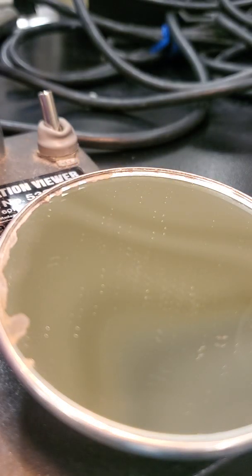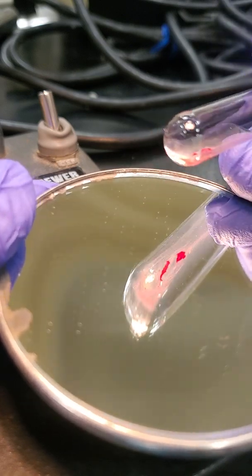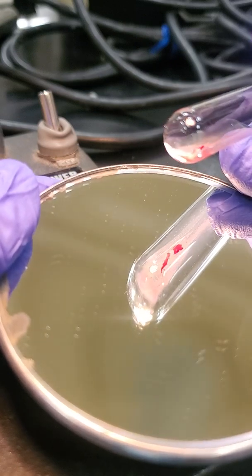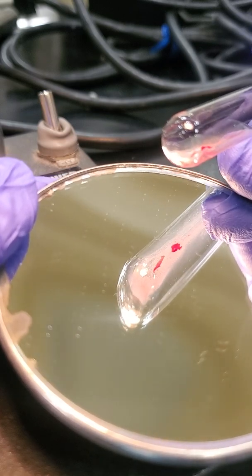So we have a check and balance system. We want to make sure that we're getting the right type for our patient. So our reverse should be the reciprocal of our forward. Our reverse is testing our patient's antibodies. So this tube is our A cell tube, and it is the reciprocal of that so far. So this we would call a 3+ reaction.